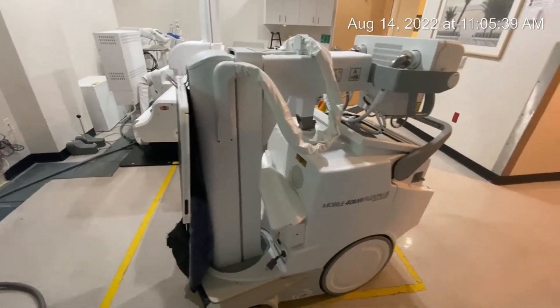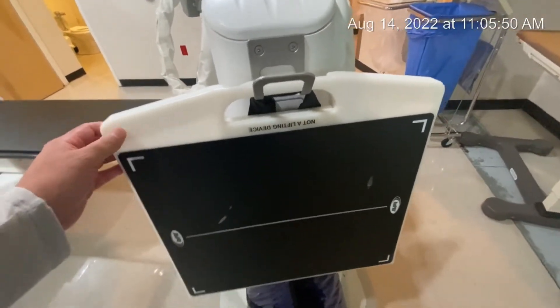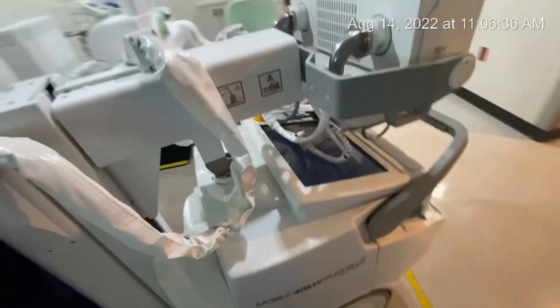So this is what a portable machine looks like. This thing right here is the grid — this is what you use if you're doing bigger patients, like abdomens, or anything that requires a lot of penetration. To get a clearer picture you want to use the grid. Inside you'll see the cassette — that black thing is a cassette and it actually pops out. The things you don't need a grid for are extremities like hands, feet, and knees. You take it out or flip it over for those. It's a pretty cool machine.